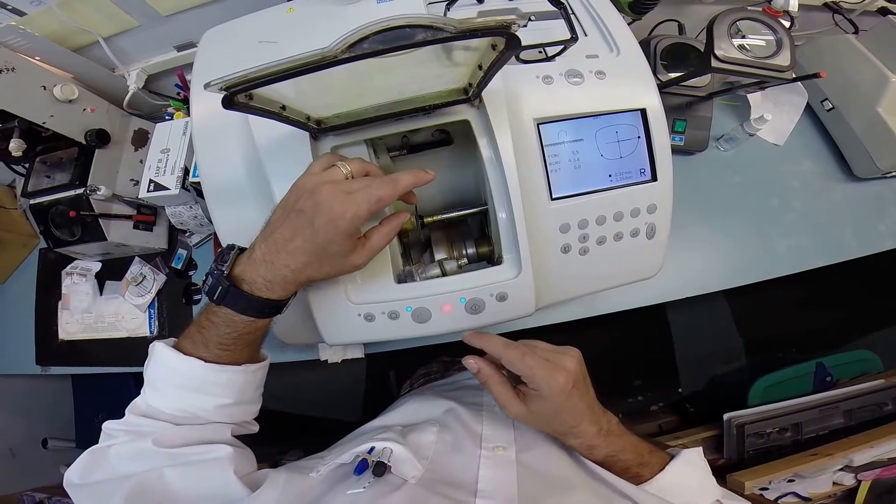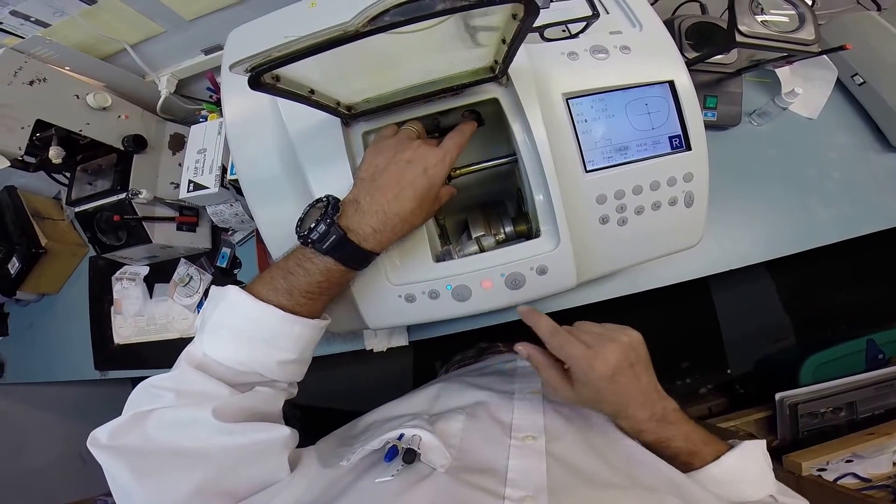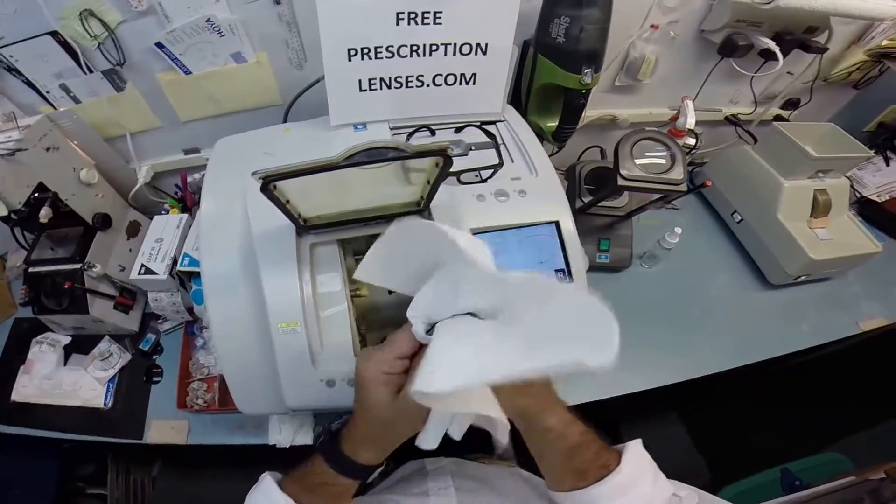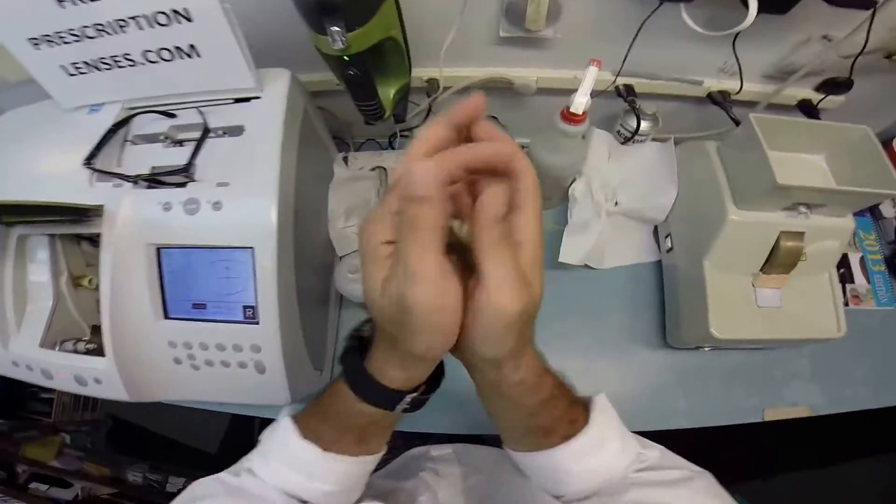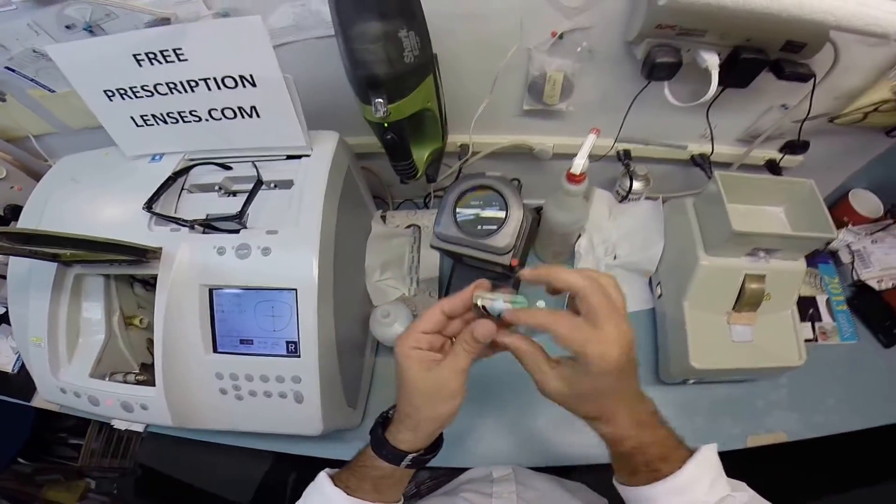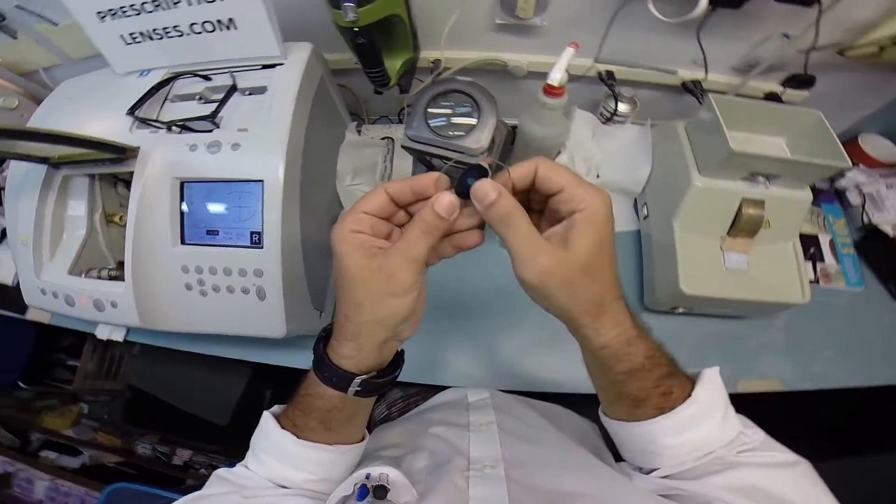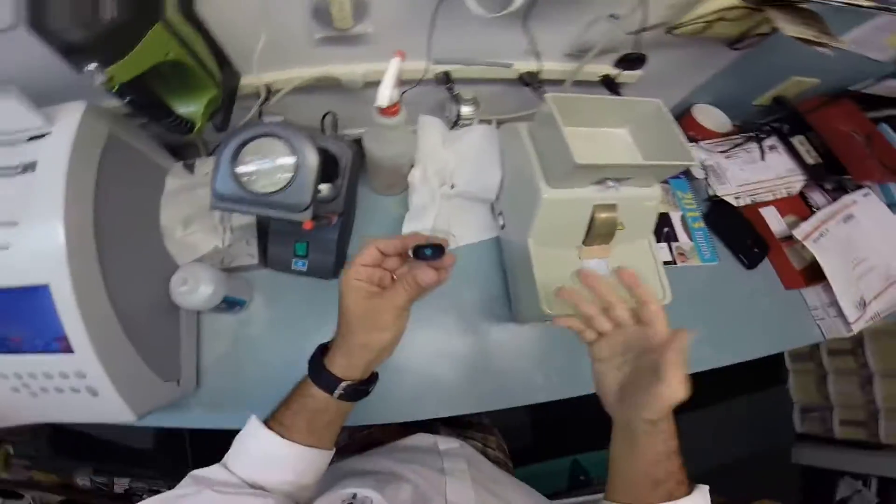Here it goes, it is stopping. I'm going to take your lens out of the chuck once the machine stops and beeps at me. Now I'm drying your lens off so it's not slippery anymore. Now Mo, just like you, your lens has some rough edges. Sorry, I had to get a little jab there - we're old friends, I've been talking to you since yesterday.